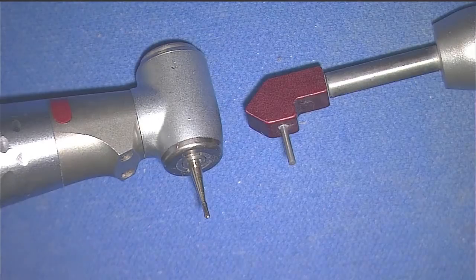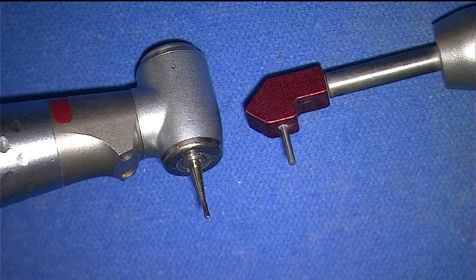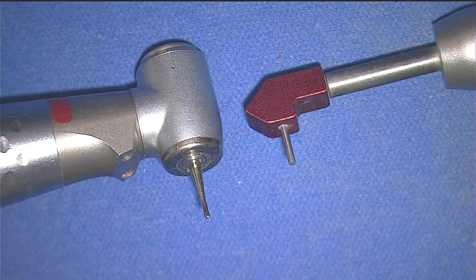Here is one of the smallest drill bits that we use in dentistry. And if you look at the little hole in the nozzle, that's what we have as a tool.